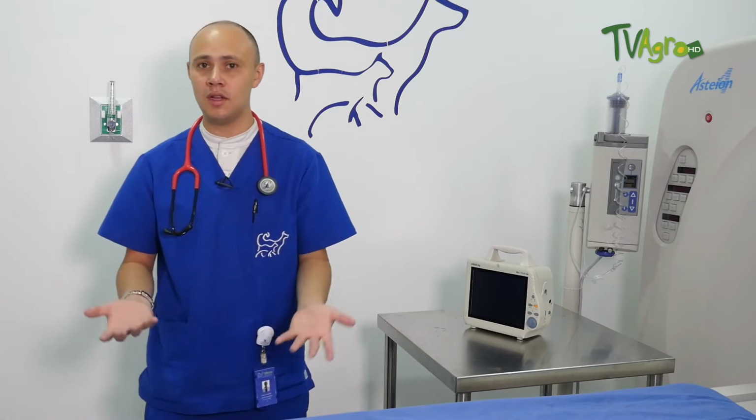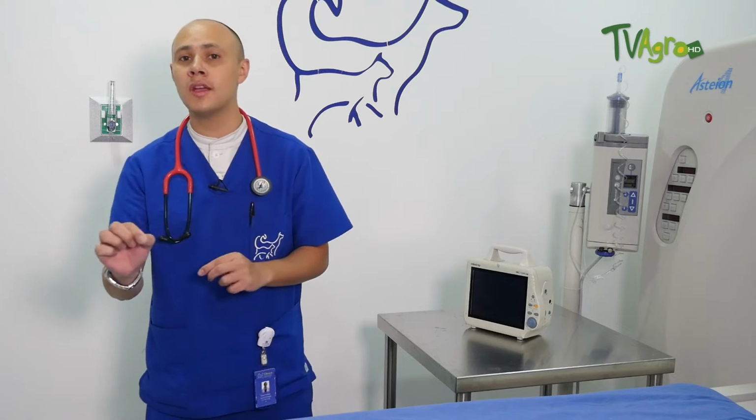Why? Because the images must be obtained and the patient must be completely still. Many times simply the breathing of the patient can alter the image, and if we are talking about very small alterations, say a tumor of 1 centimeter, the movement of the rib cage and breathing can alter the image and give us a false negative or a false positive. So patients should always be under general anesthesia. It is also very important to take into account the anesthetic risk of the patient.